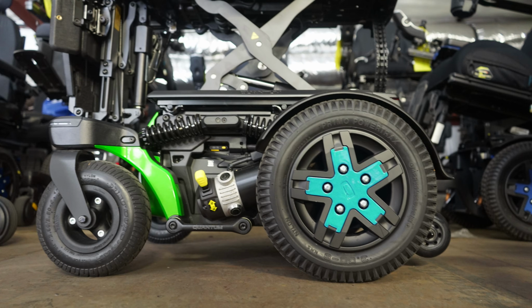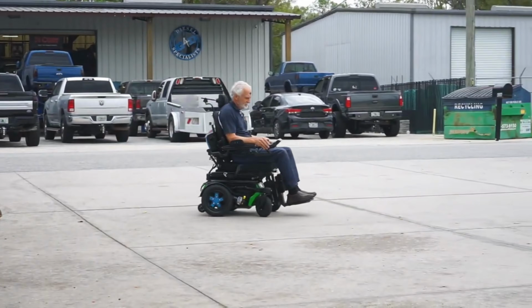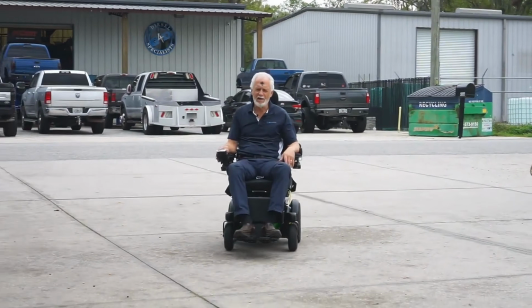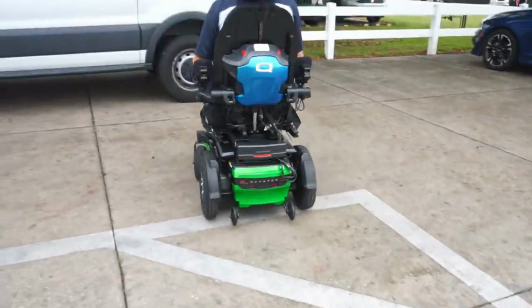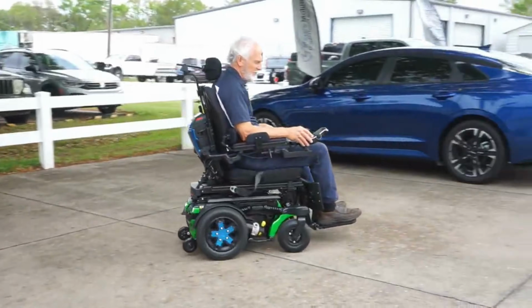You are going to have caster wheels in the front, but once again, it's kind of like that front wheel driven unit. They're going to be a lot bigger and wider caster wheels, and they typically have really good suspension, so it almost will lift up and over an object. So if you're looking for something that has truly the best outdoor capability between a front, mid, and rear wheel, then the rear wheel drive configuration is going to be the best. But just remember, if you've not had a chair before, it's typically the hardest to navigate in smaller spaces.